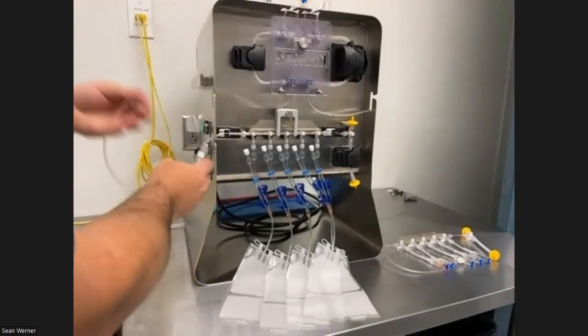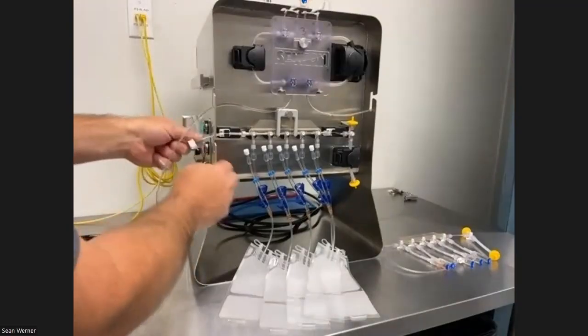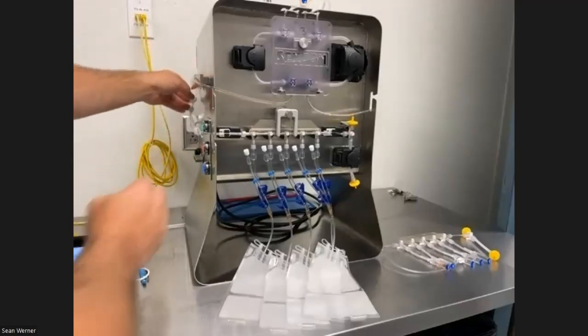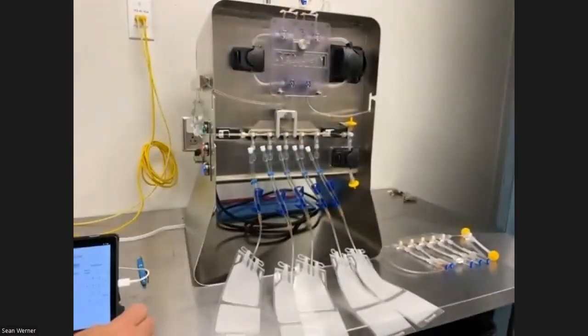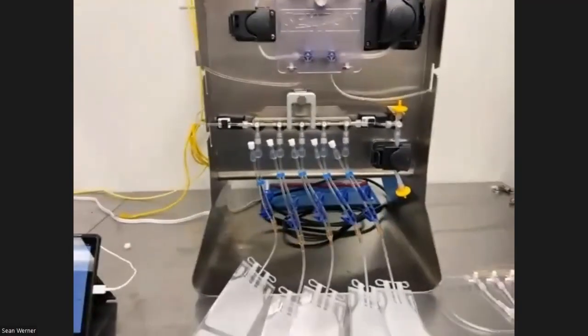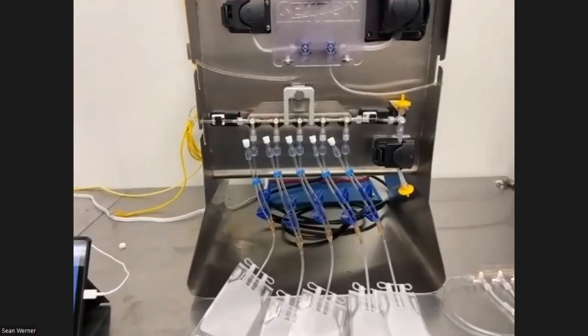All right, so the samples, the new second set is connected. That's really all you have to do. Make sure the clamp is back open. What do we got here? Everything's okay. Go back to the protocol. Is everything connected? Yes. See if you guys are seeing it okay now. Should be able to hit start.